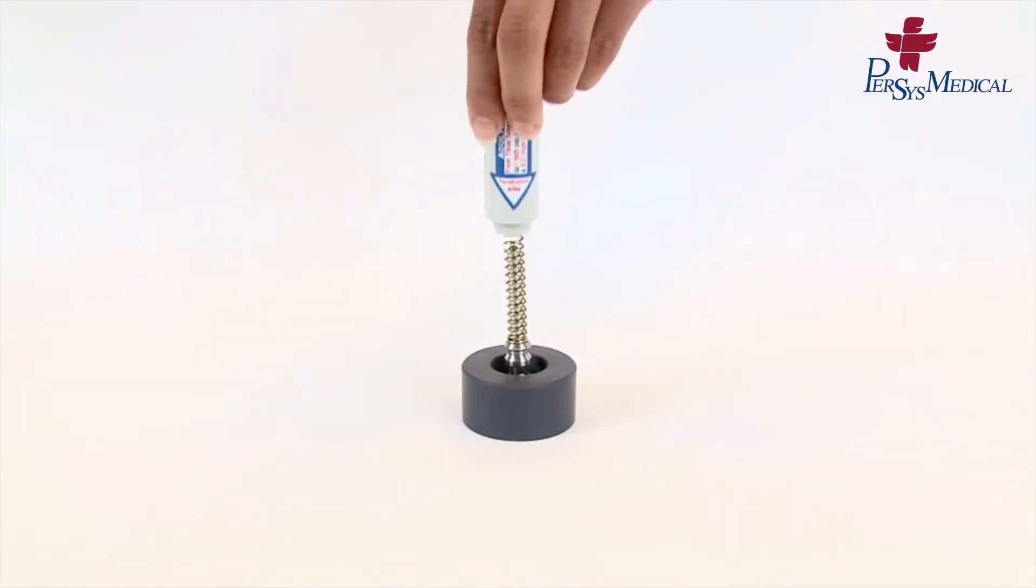Place the top barrel on top of the spring. Arrows should be pointed downwards.